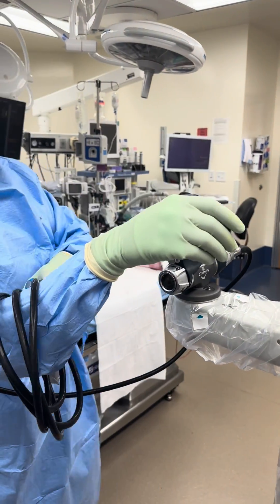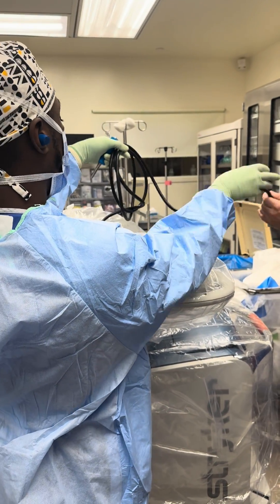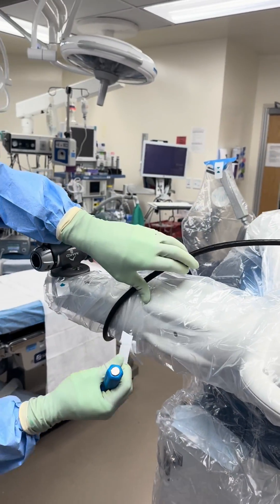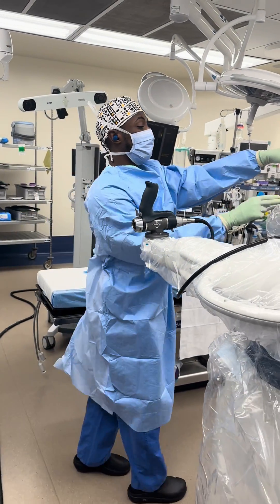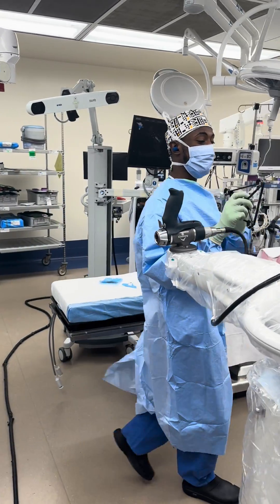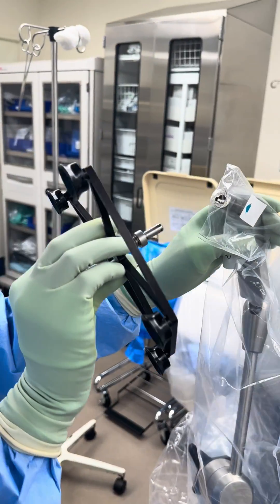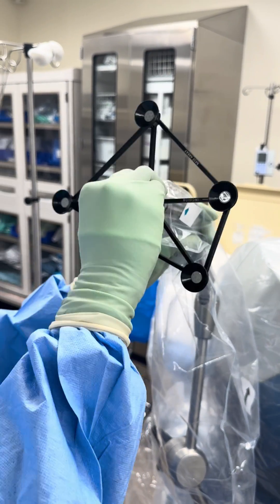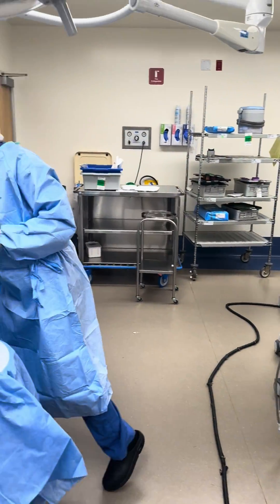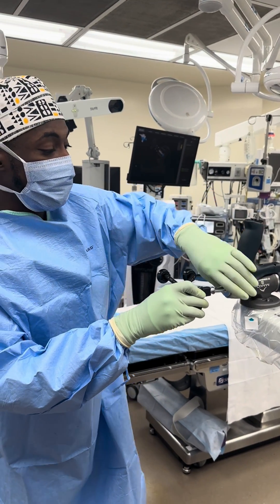Pass the cord underneath and wrap it over the top, then strap it on so it's not hanging too low. On this side we put the base array — it has grooves so it fits in perfectly. Be careful because it's not sterile once you take that tab off. Press it on and make sure it's locked in. Then we take the end effector, put that in there and lock it. Now we're good to start.